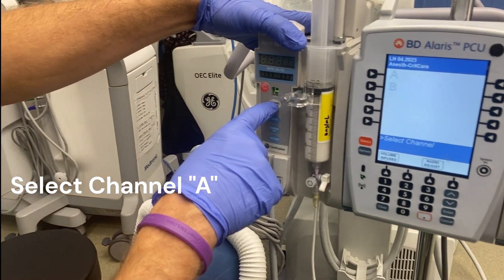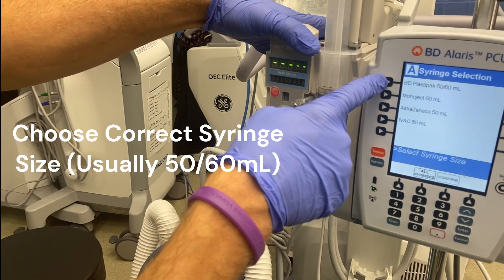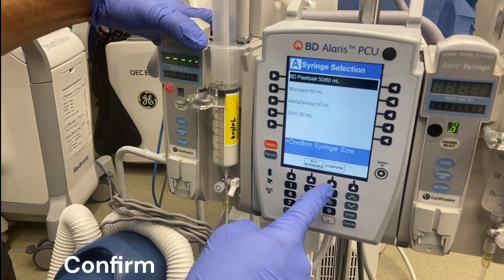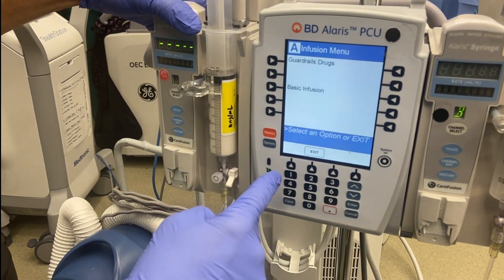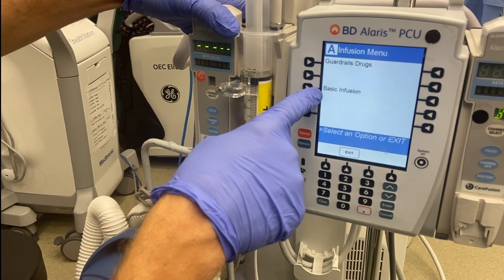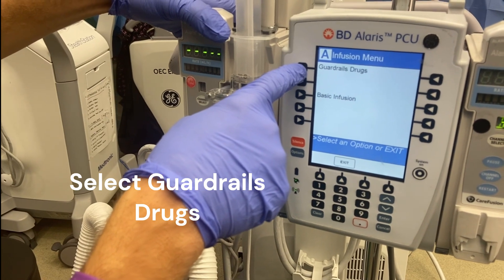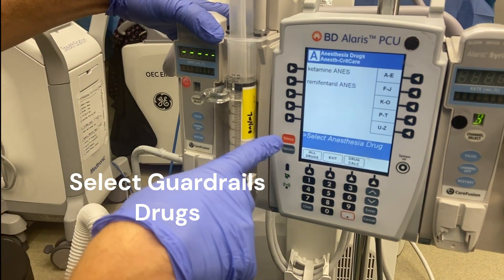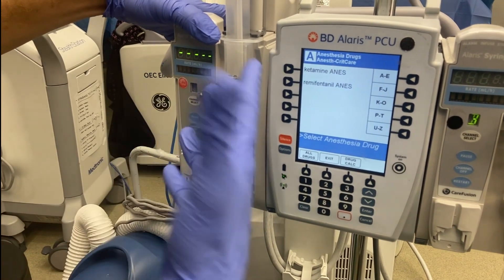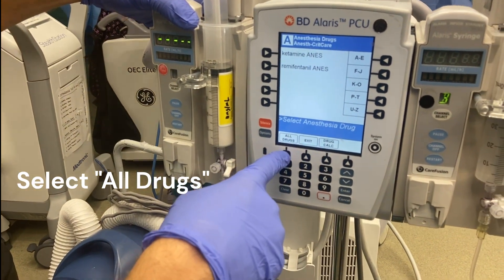So let's program propofol first. We're going to hit channel select — that's channel A. Now I'm just going to choose my 50 to 60 milliliter syringe there. I'm going to hit confirm. Now we're going to go to a basic infusion — it's just milliliters per hour — but I'm going to go up here to drugs to select the drugs. You'll notice that it only shows two drugs here. In order to get all the rest of the drugs to come up, you've got to select all drugs.